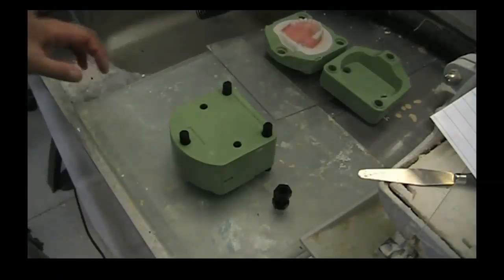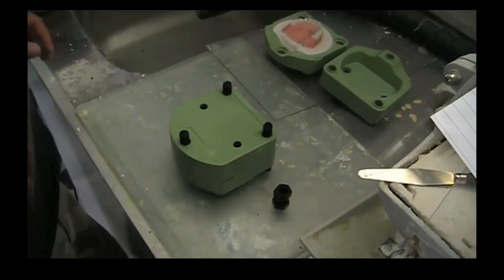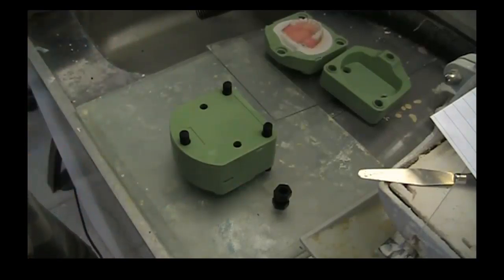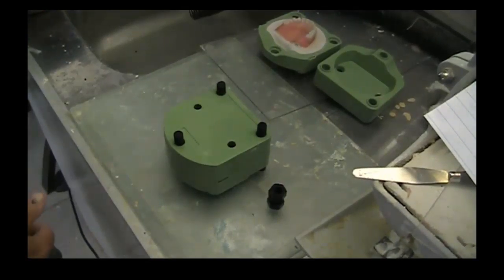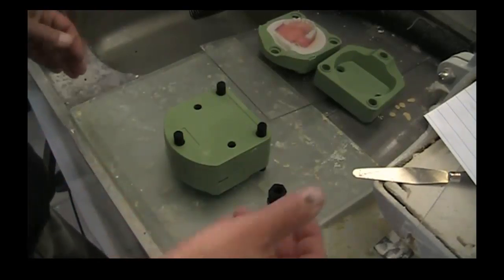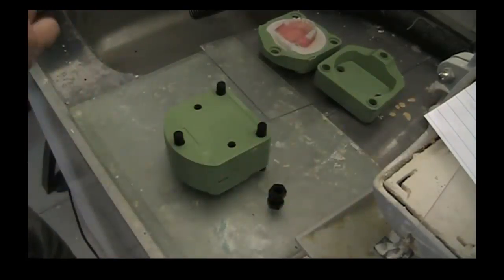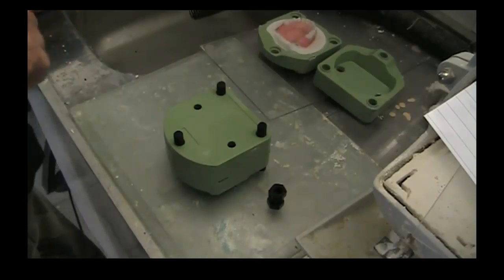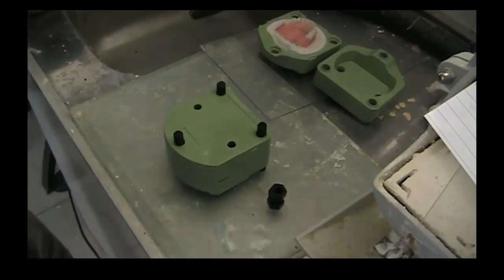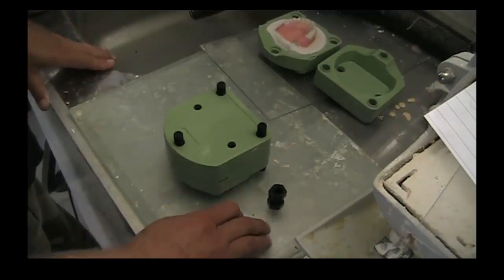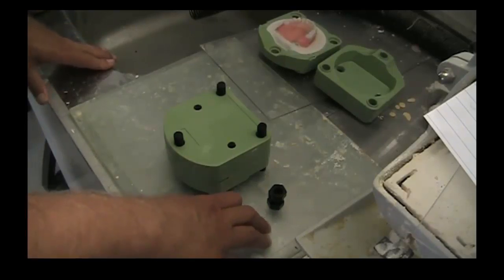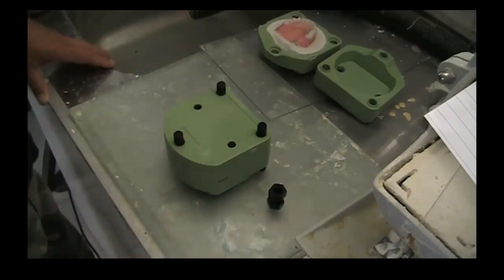I've been getting a lot of questions about microwave flasks. Microwave curing is catching on, folks. If you haven't already caught the wave, you really should look into it further. There's plenty of research out there to back up my claims and other people's claims. I can only give you my anecdotal observations, but the fact of the matter is that microwave curing is here to stay and it's a really great way to do things.